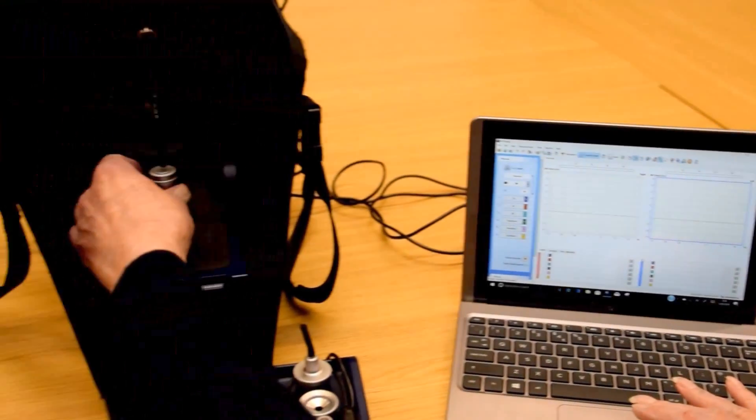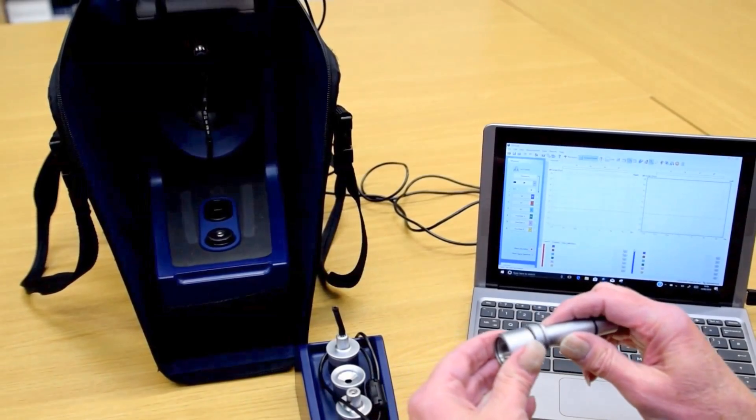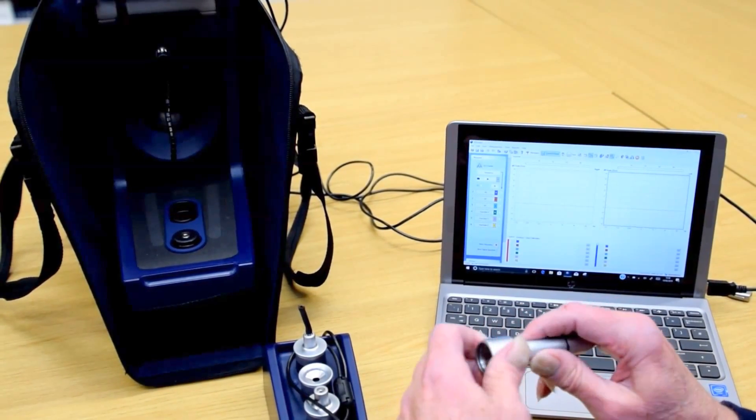Open that, take the 2cc coupler microphone in, and put the 2cc coupler back.